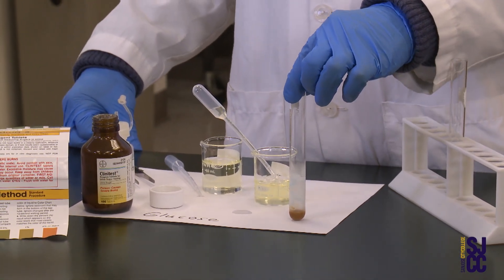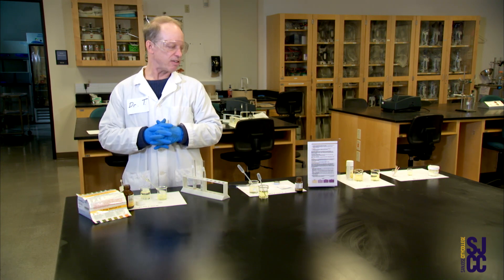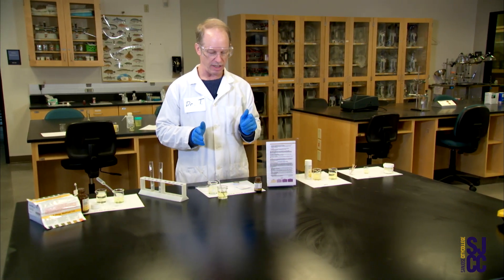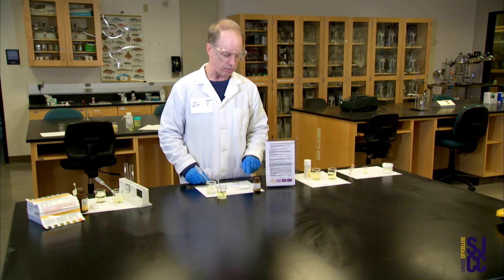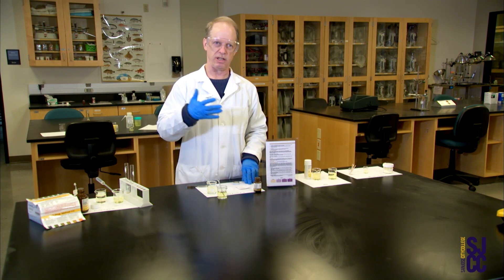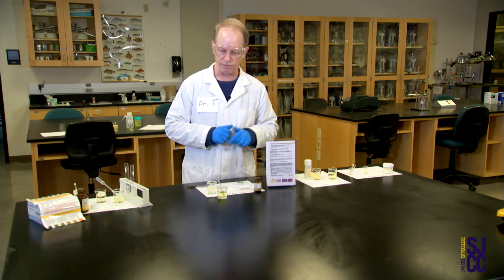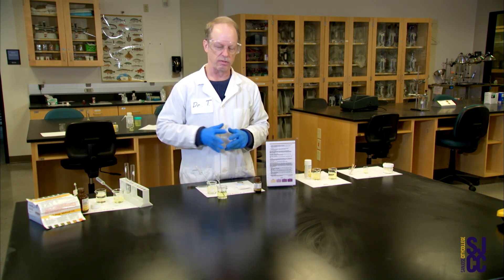That's how you do the glucose test — pretty easy, thanks to these tablets. Next on my agenda, same idea, only different. What I've got set up next looks kind of similar but it's not the same. This also involves using tablets — these are specifically designed to test for ketones in the urine. If we find ketones in the urine, we call it ketonuria. This is counterintuitive compared to adding droplets to a solution or tablets and watching them fizz.